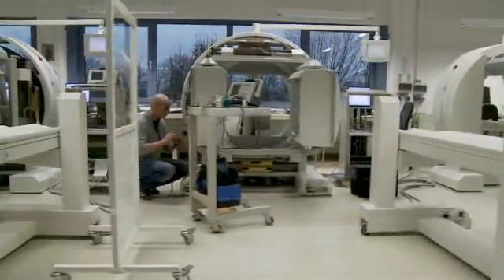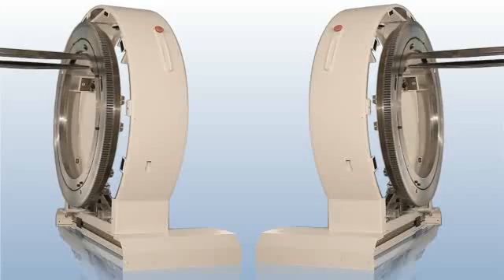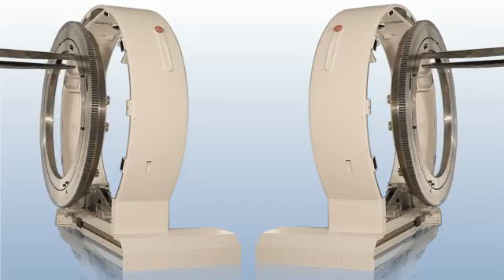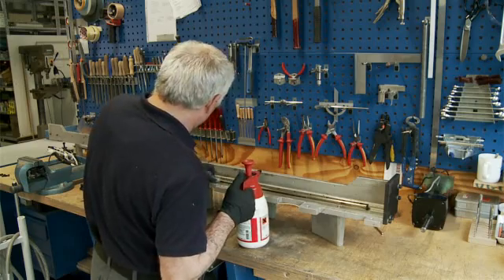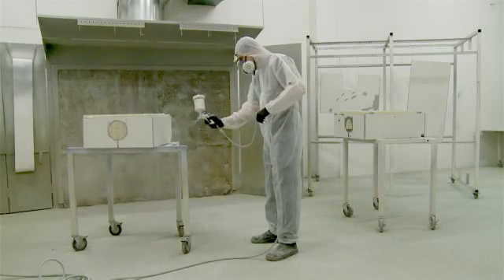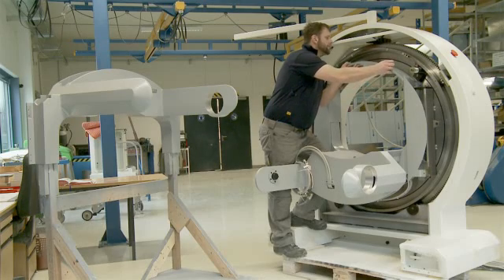The MIE company, based near Hamburg, is specialized in this. Following the complete disassembly of a used system, the mechanism is intensively cleaned and the visible parts are painted. After the replacement of the worn parts, the complete system is assembled.